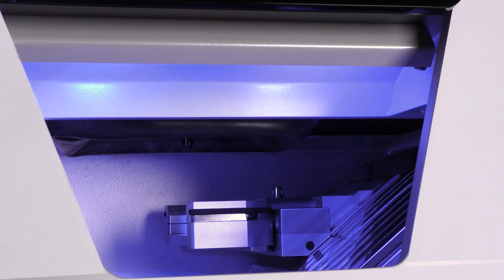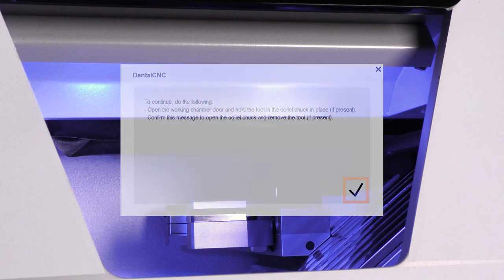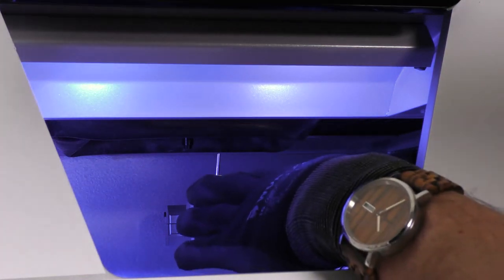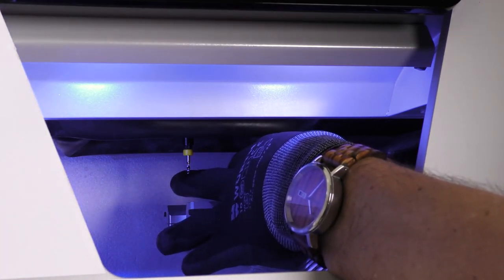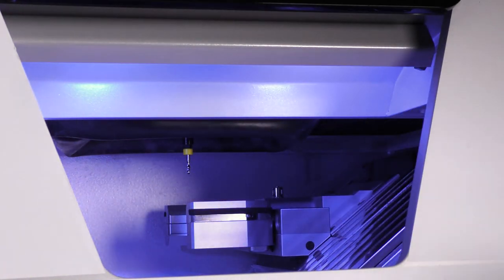If there is a tool in the collet chuck, hold it in place. Confirm the current message in the on-screen guide and remove the tool. Insert the dedicated drilling tool into the collet chuck and hold it in place. Be sure to insert the tool until the tool ring reaches the tip of the collet chuck. Confirm the current message in the on-screen guide. The collet chuck closes and you can release the tool.